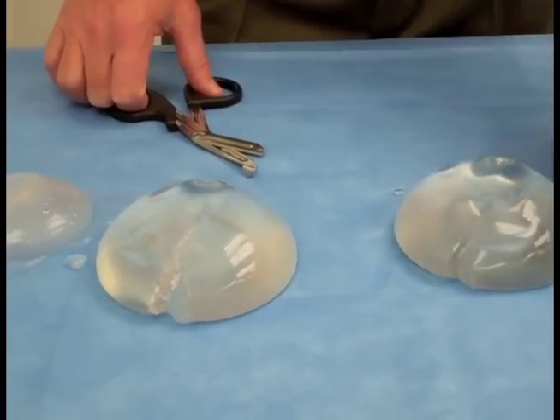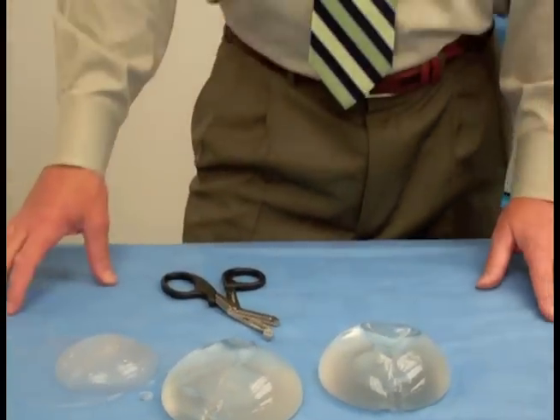I hope that this helps illustrate the difference between silicone and saline implants and the idea of cohesive implants, or what you might refer to as gummy bear implants. I hope this helps a lot, folks. Thank you.